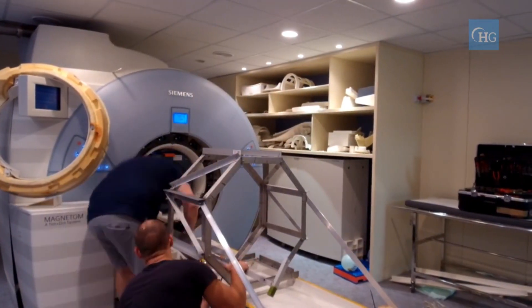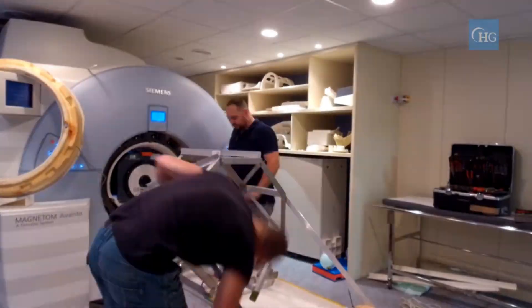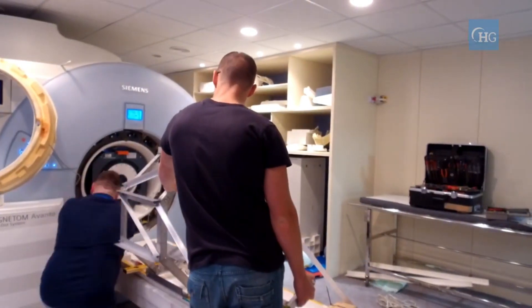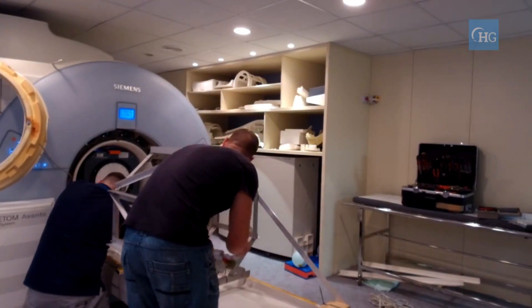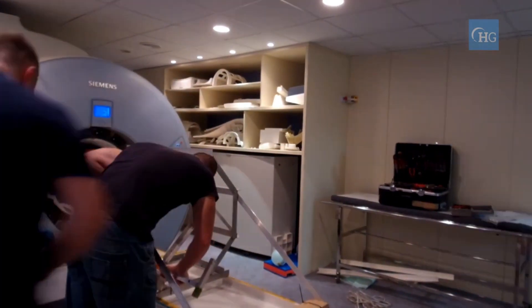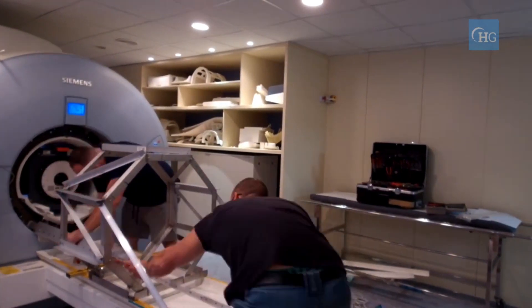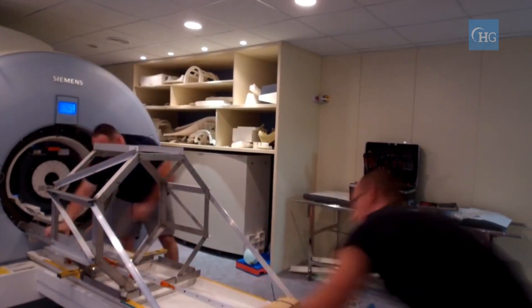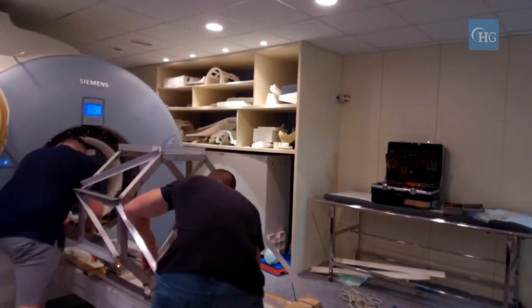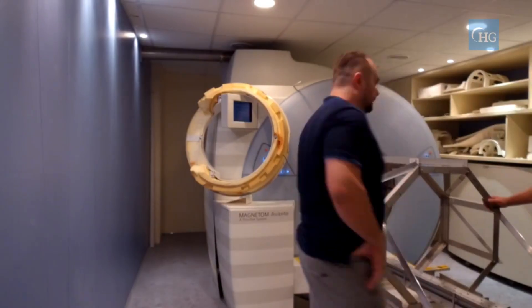Field homogeneity is measured by examining an FID signal in the absence of field gradients. The FID from a poorly shimmed sample will show a complex decay envelope, often with many humps. Shim currents are then adjusted to produce a large amplitude, exponentially decaying FID, indicating a homogeneous field. The process is usually automated.